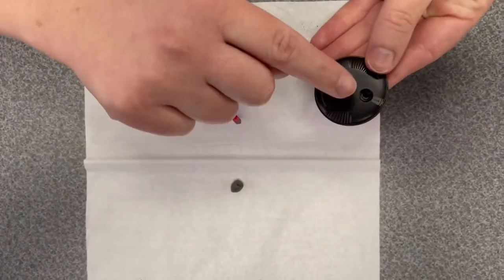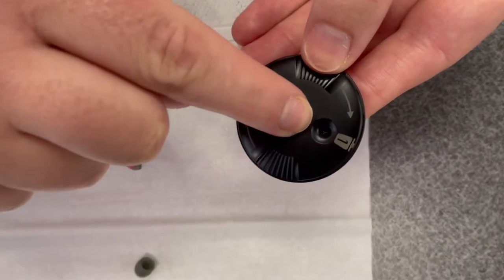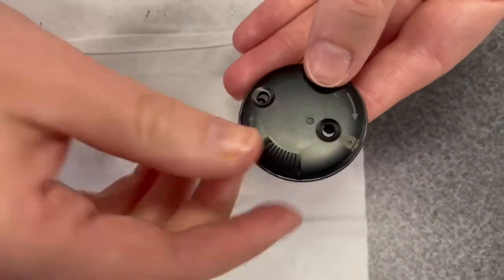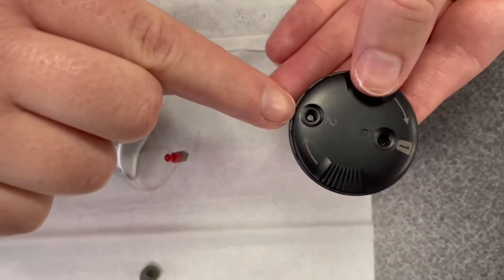Take your wax guards. Slot number one should have nothing in it. Slot number two should have a new wax guard in it.